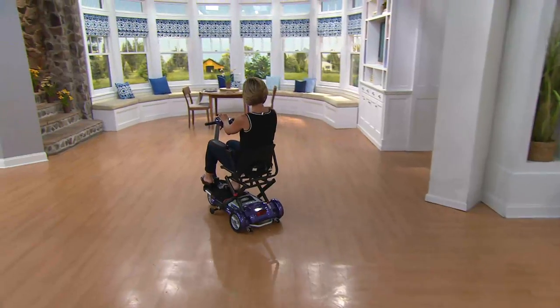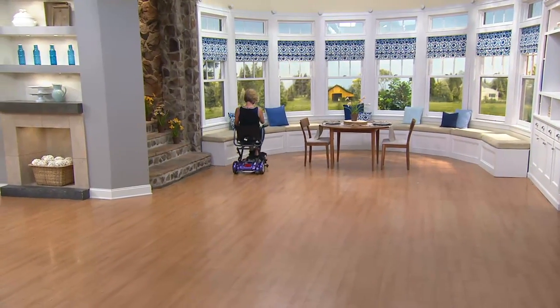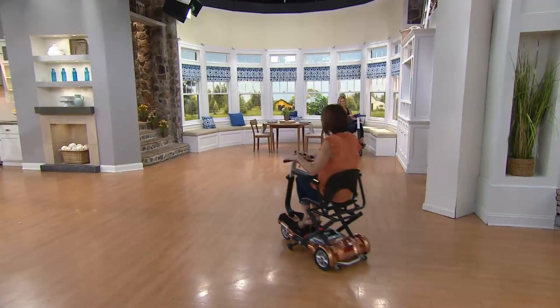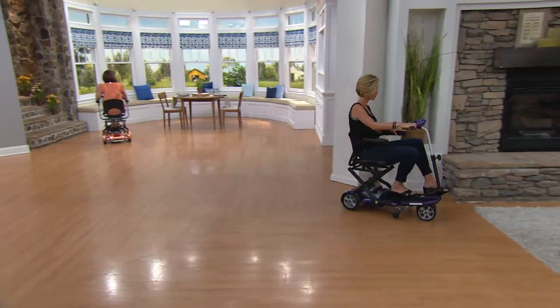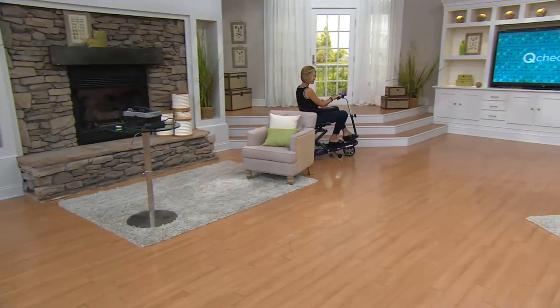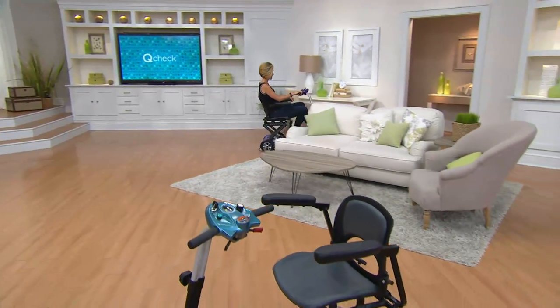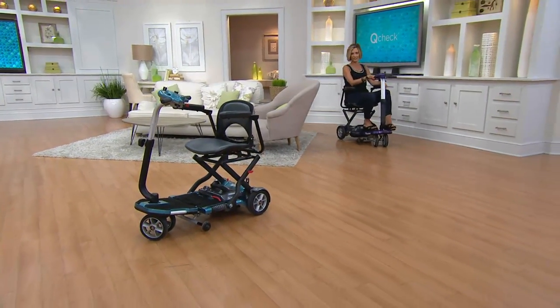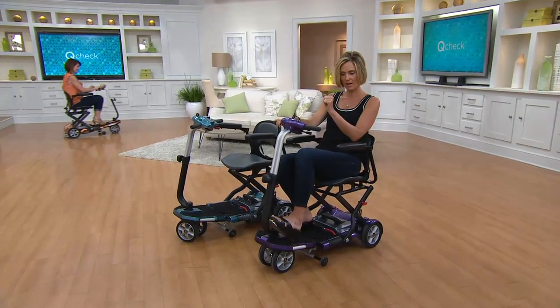There are a couple of upgrades made on this one. We added 25% more battery life, and the QVC customer asked us for armrests, so we provided removable armrests that are also padded, just like the seat back and the seat. It's a new added specialty for the QVC customer, along with that 25% battery life which gives you 12 to 18 miles of use on a single charge, plus the exclusive colors for QVC including violet and copper.